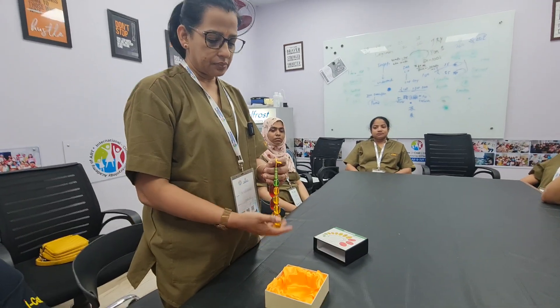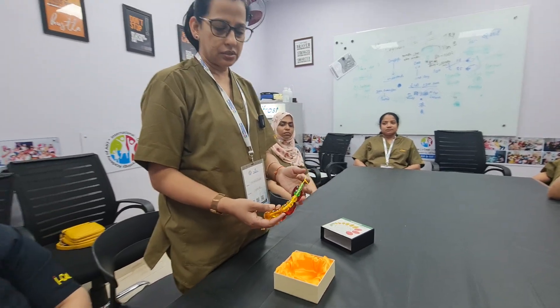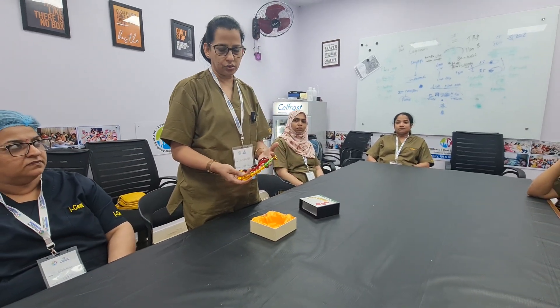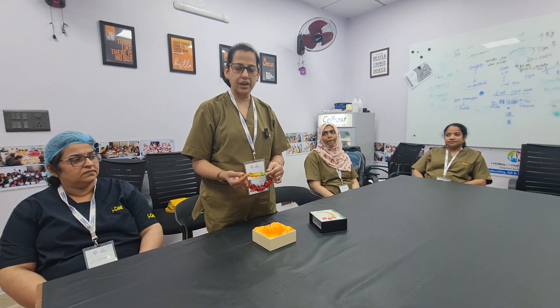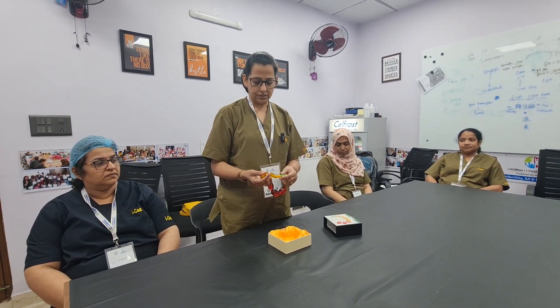Initially he used wooden beads, but in this there are glass beads of different colour and volume. These beads signify the testicular volume in pre-pubertal age group, pubertal age group, and the adult age group. The pre-pubertal age group beads are green in colour and they range from volume 1, 2 and 3 ml size.